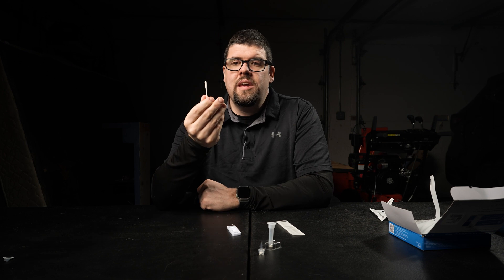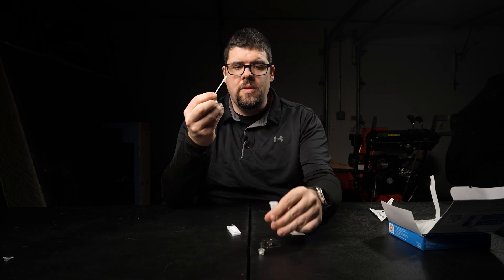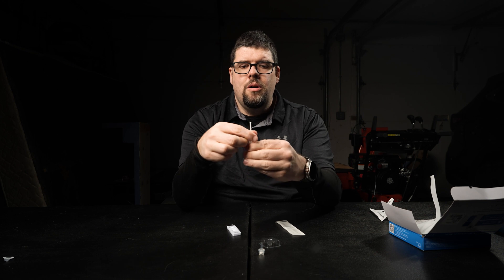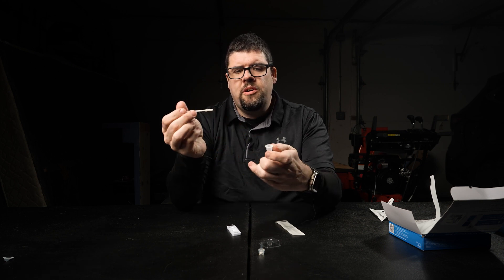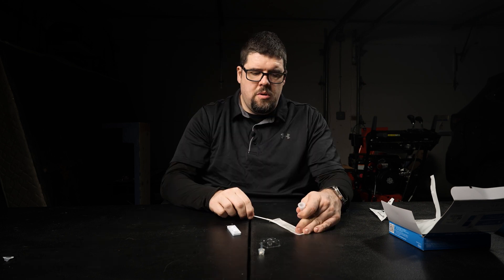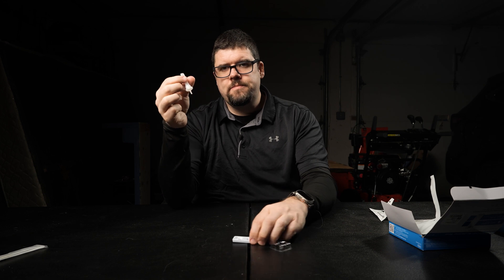See how far up I am — I'm also spinning it in my hand ever so slightly. Now I'm going to go to the other nostril and do the same thing. Once that's all set, you may have some snot on there. Pick up your vial and pop it in. Now we're going to spin this around a few times. I like to pinch the bottom with my fingers and spin so it really engages the solution. Then put your fingers at the top, put it back in, and try to wring out as much of the test solution as possible. Once that's all done, take your little cover and pop it on — you're going to get a little snap. Turn it around and put it upside down.